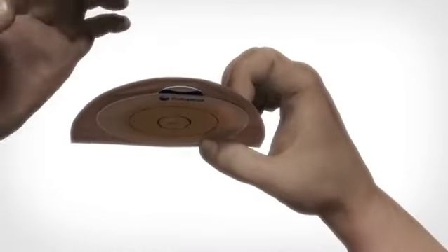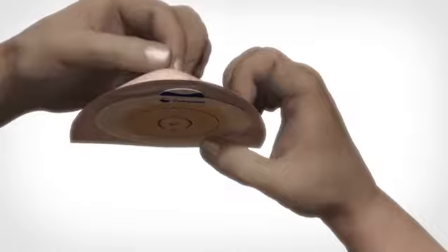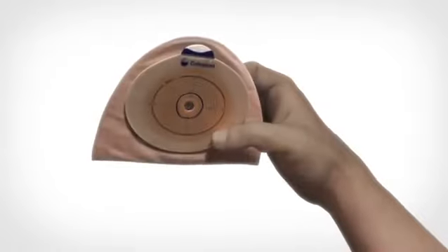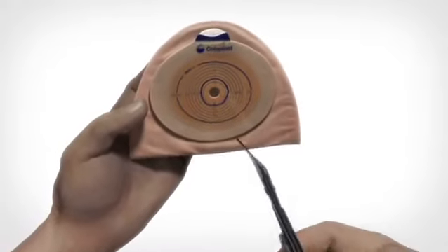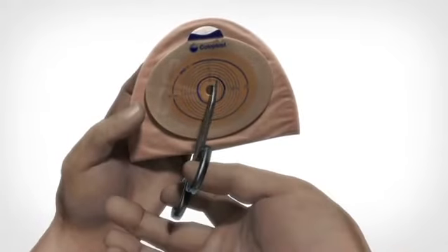Pull away the bag a bit to ensure you don't damage the bag itself while cutting the hole. To cut, use a pair of scissors not too big and preferably with a curved shape.